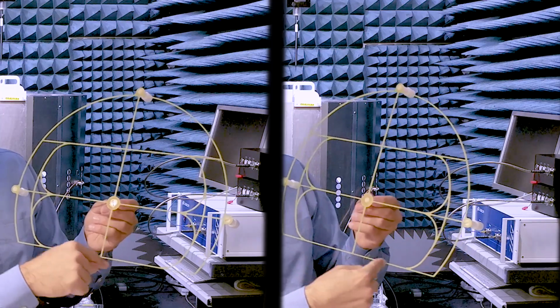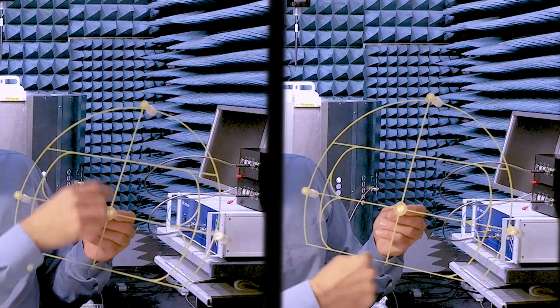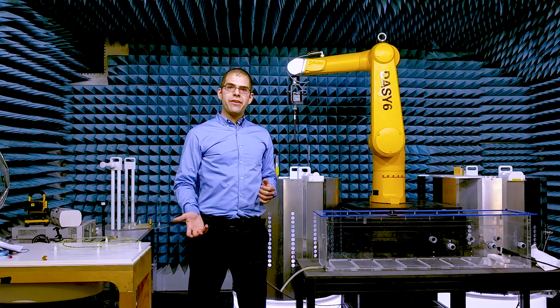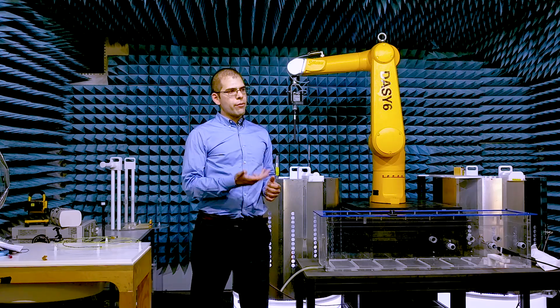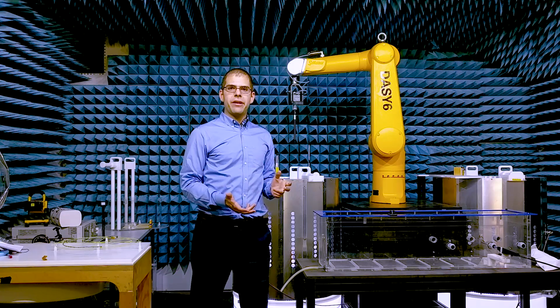I just showed you one measurement set, but repeating it with a second routing is a fast way to get even greater field diversity. That's how we get a validated transfer function. It's very fast and easy. As a next step, we're working with Zurich MedTech to automate the evaluation process using the power of IMAnalytics. But meanwhile, that's it for episode 2.